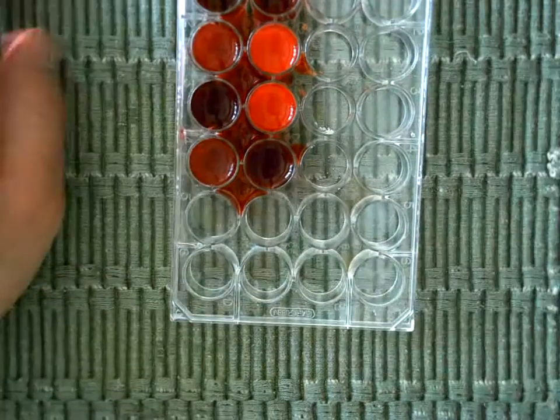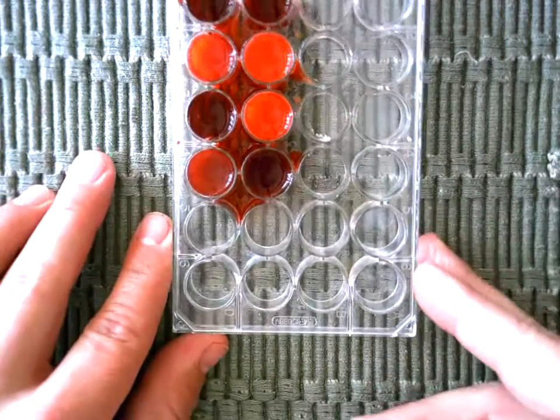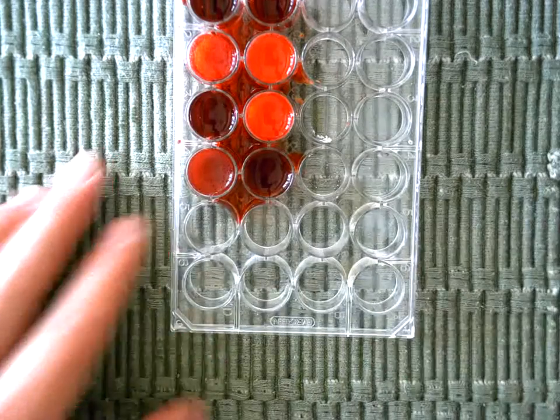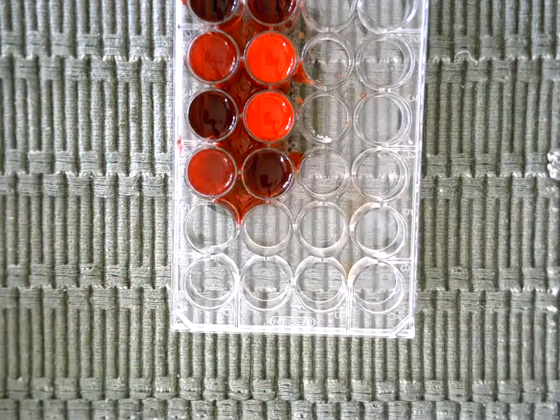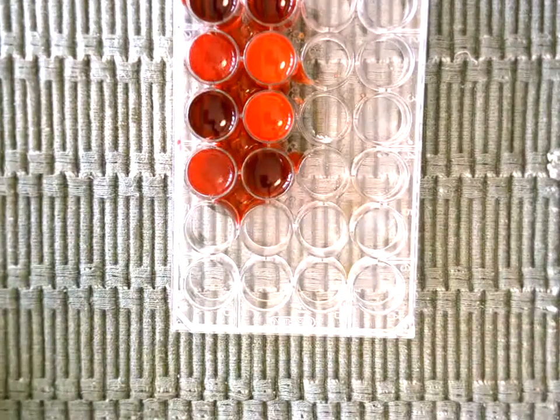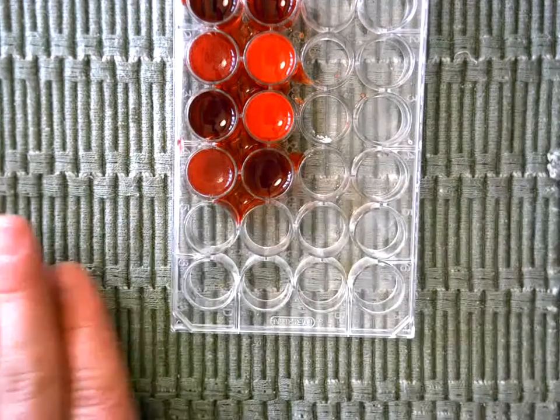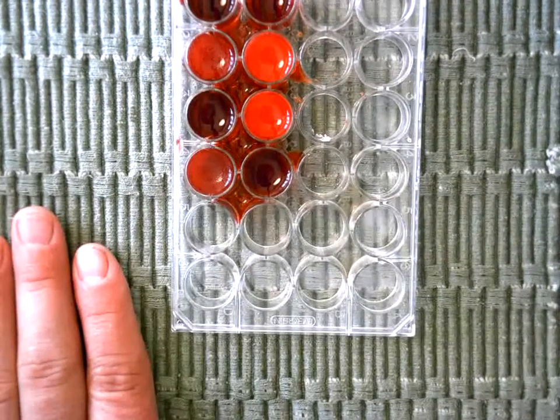Okay, now we waited a minute and I don't know if you can see this very well, but some of these wells look different than before. Some of them aren't really reddish, they look whitish a little bit more, or that lighter red color, and you can see lots of little dots in there.